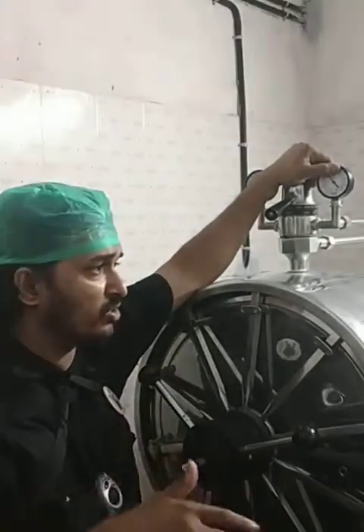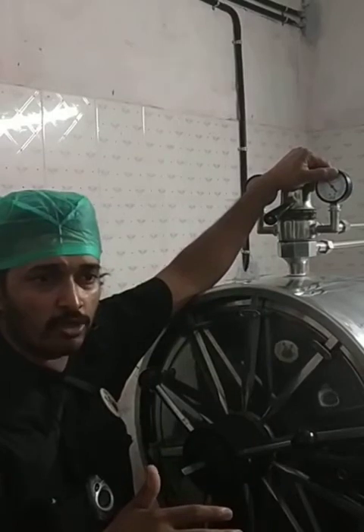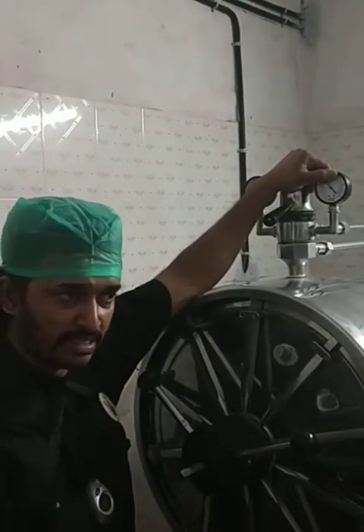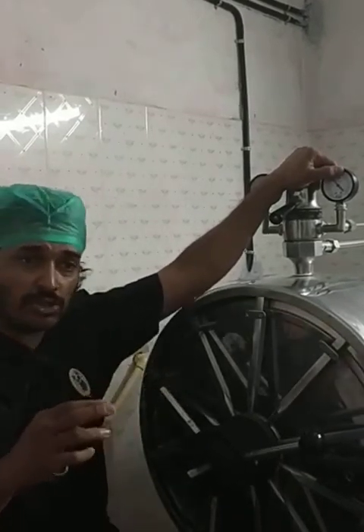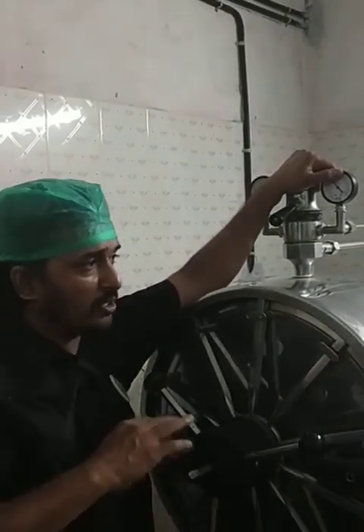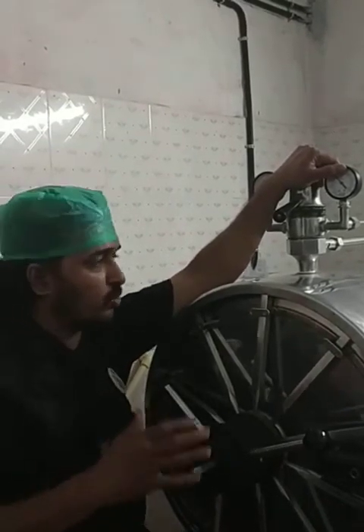If you want to do surgery on the same day, 15 minutes would be adequate. But if you really wish to store your sets for the next day or the day after — that is maximum 48 hours — then we have to ensure 30 minutes, because that will ensure all the spores will also get killed and our sets would be sterile in a true manner.